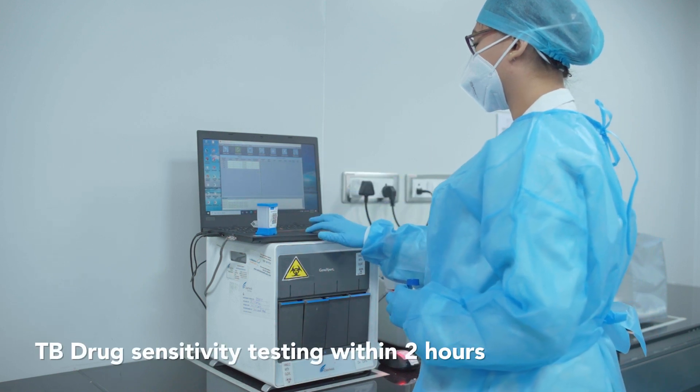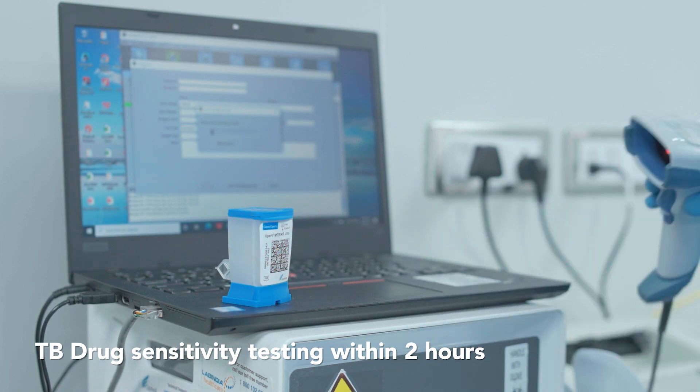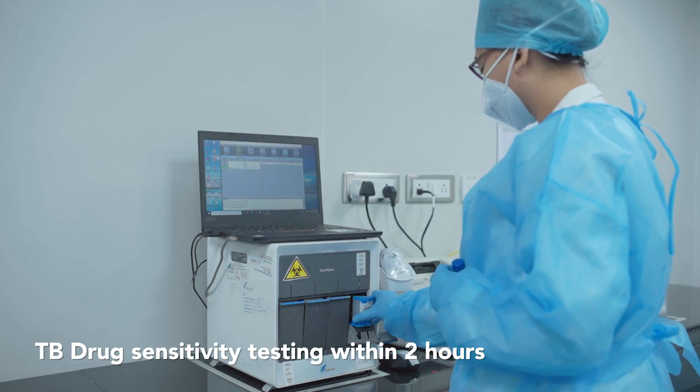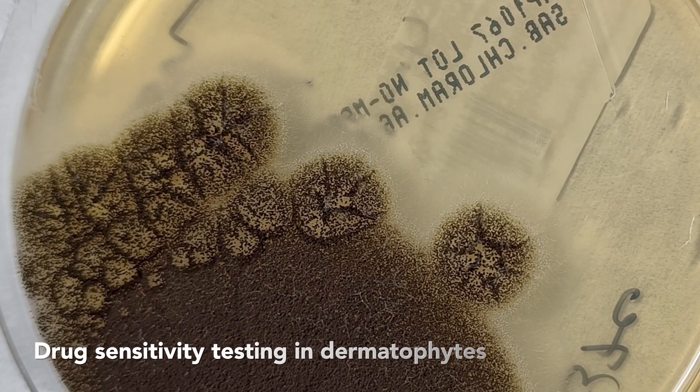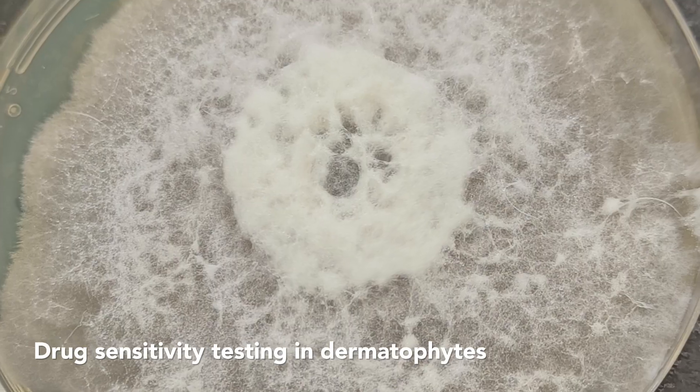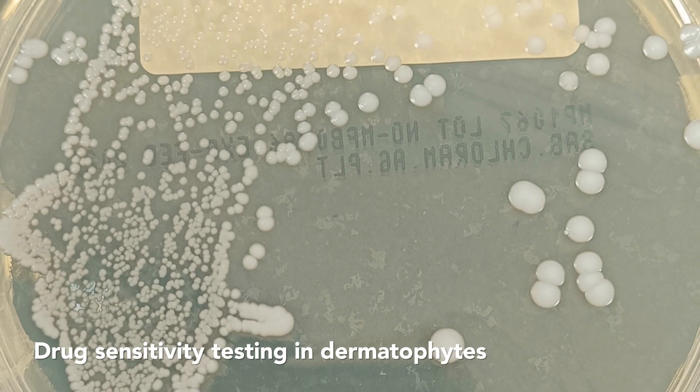It can provide drug sensitivity testing for 6 first and second line drugs from a single sample via nested PCR within 2 hours. We are the only private laboratory in Western India performing fungal drug sensitivity testing on dermatophyte infections and are proud to have unmatched expertise in the field of mycology.